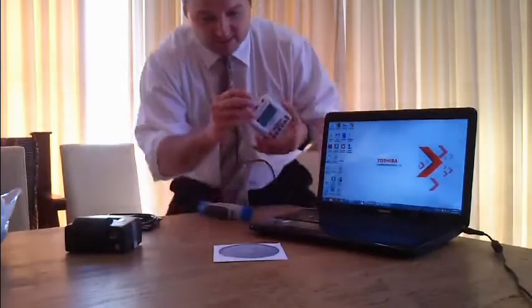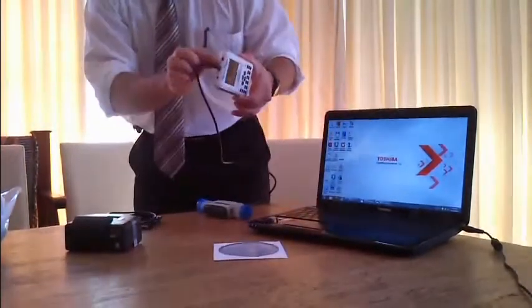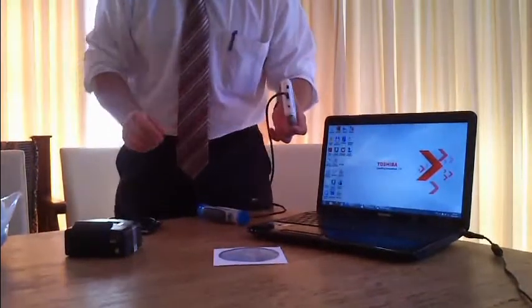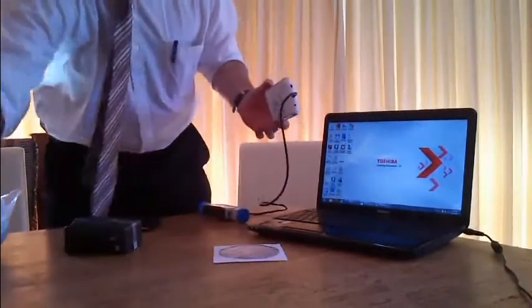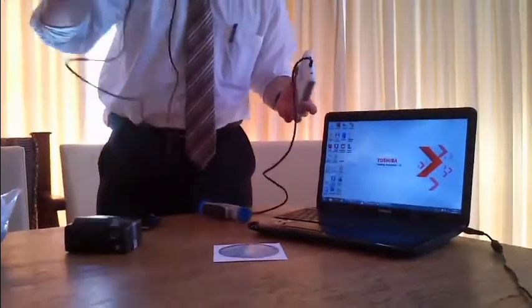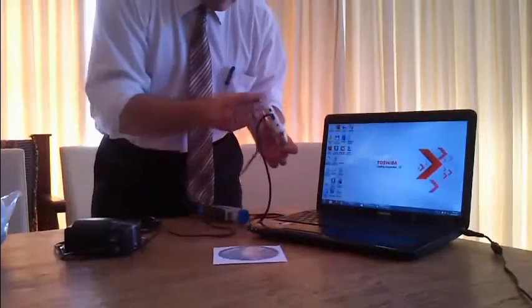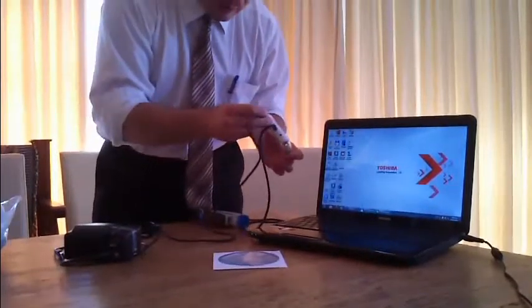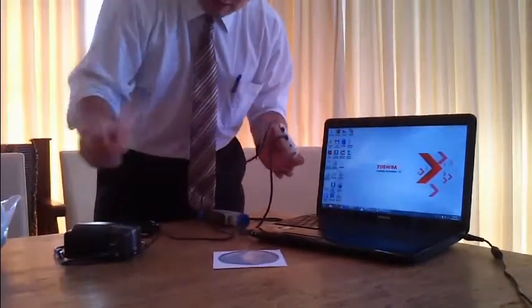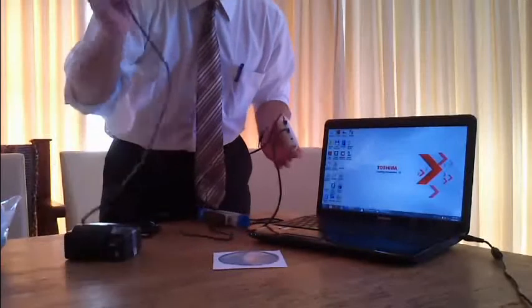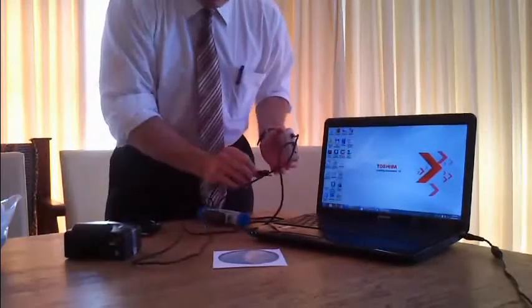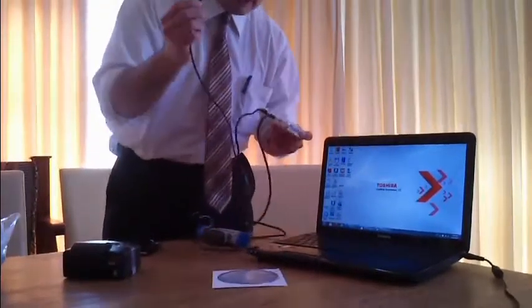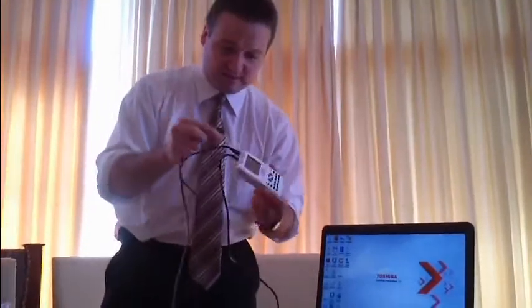This is Spirotor. The Spirotor spirometer is a standalone spirometer operated by battery. The battery doesn't need to be changed because the device is rechargeable. You can recharge the device with this mini USB plug and cable, which can be connected to the mains plug, to the computer, or to a USB charger. This is how you recharge this device.